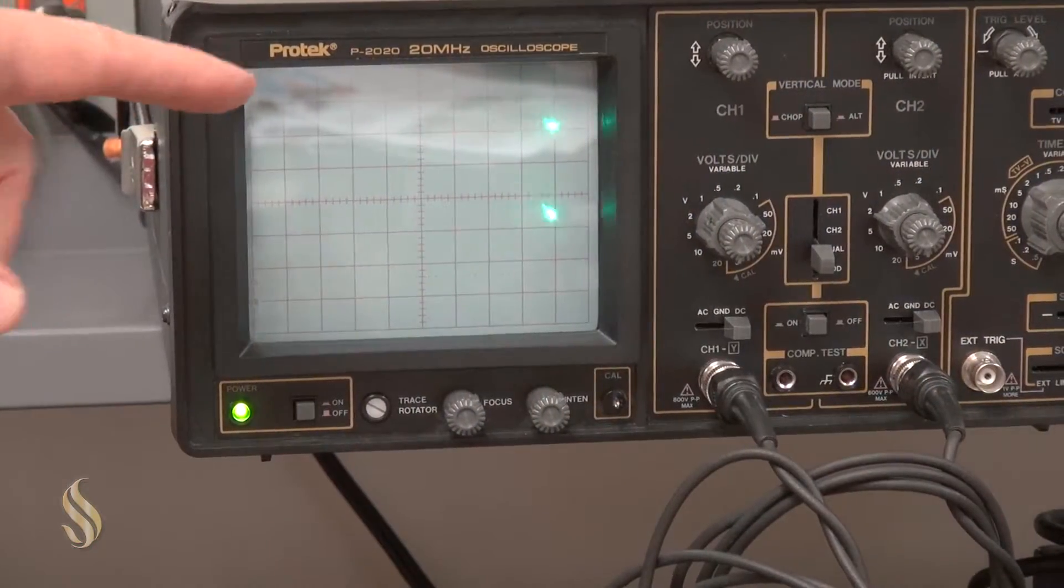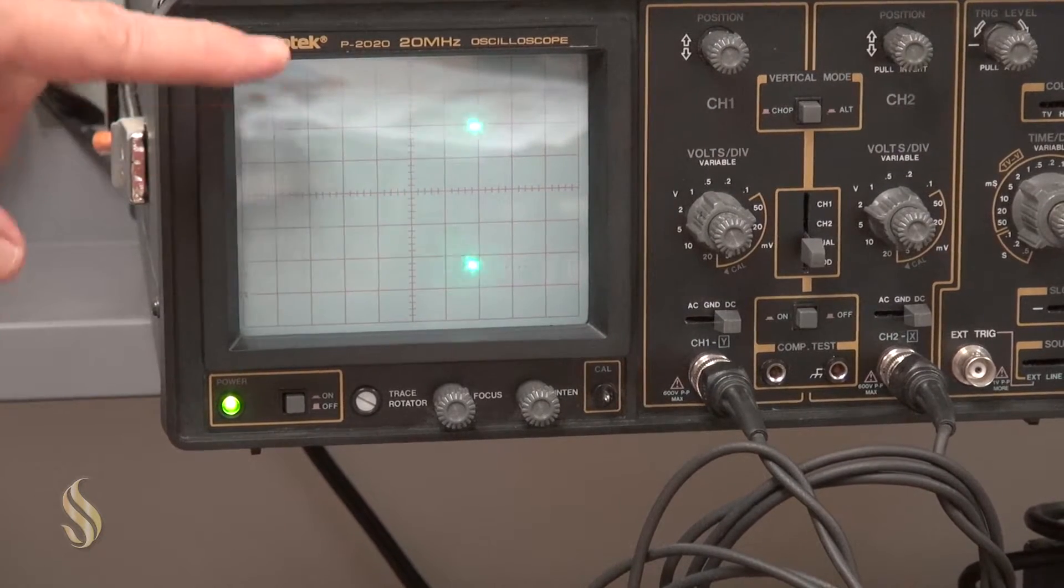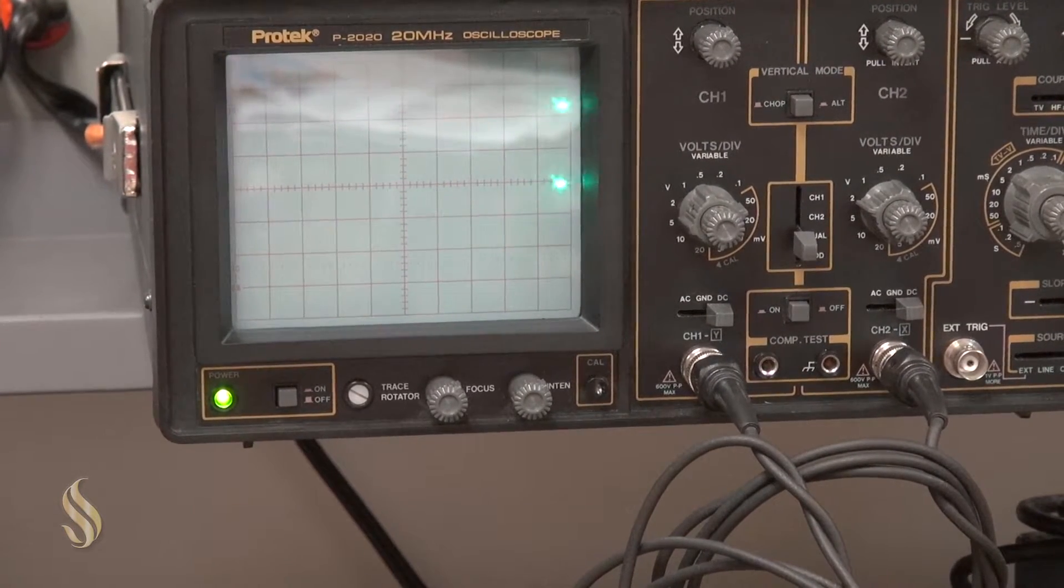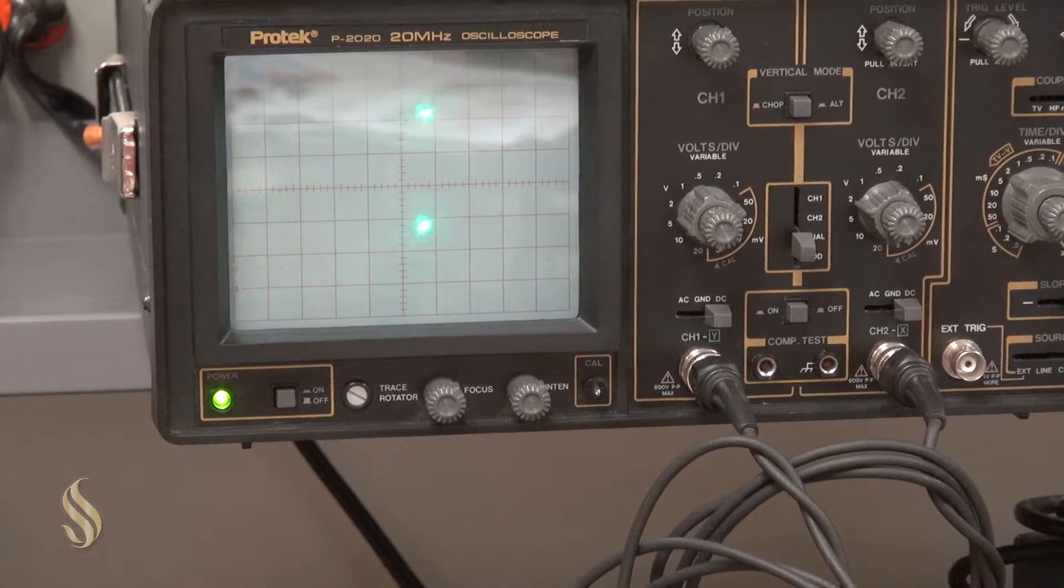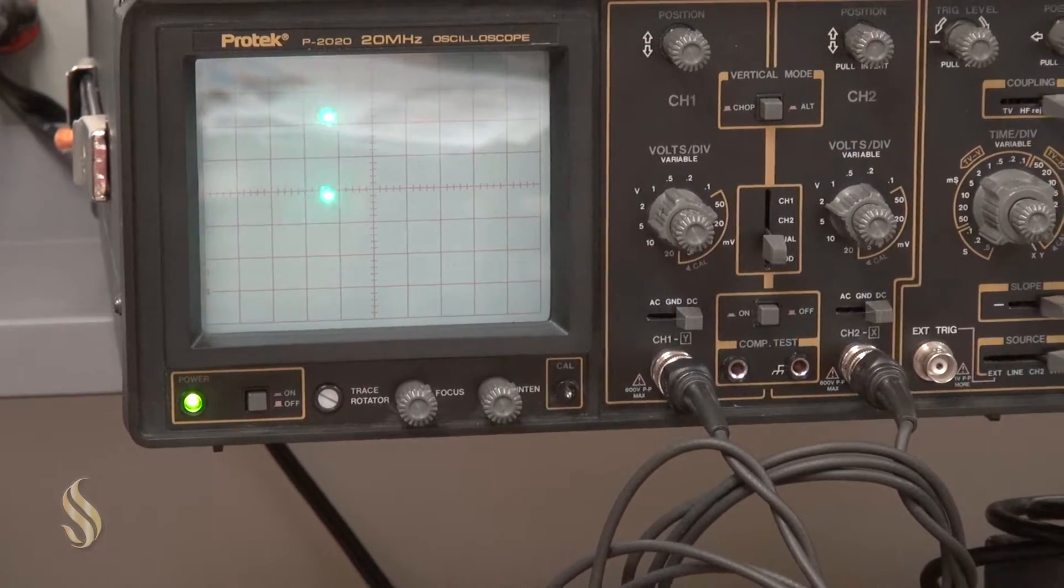The way this is fluctuating up and down is supposed to simulate how the light would get dimmer and brighter each time the baby's heart beats.